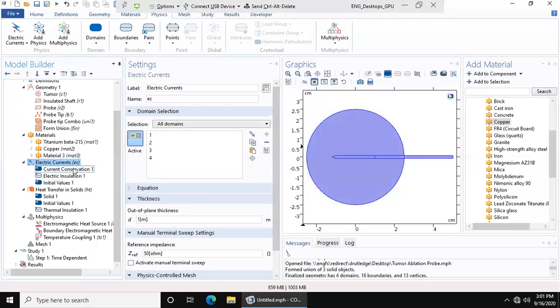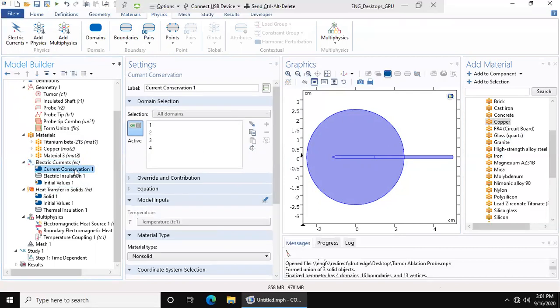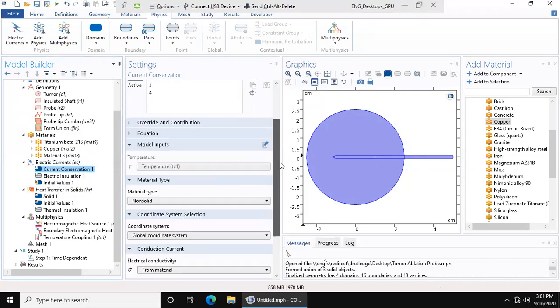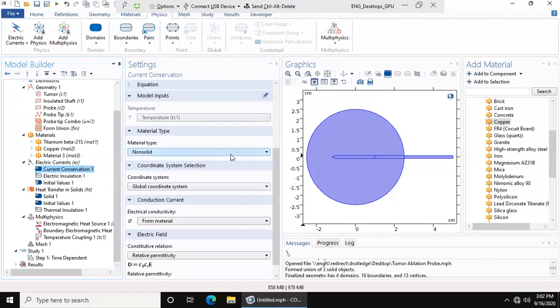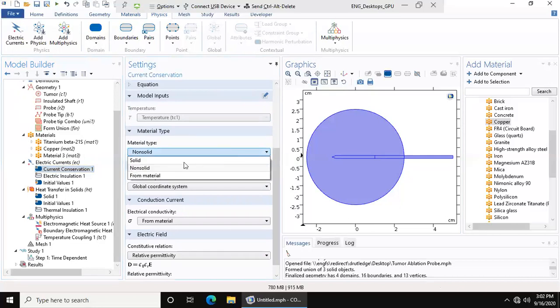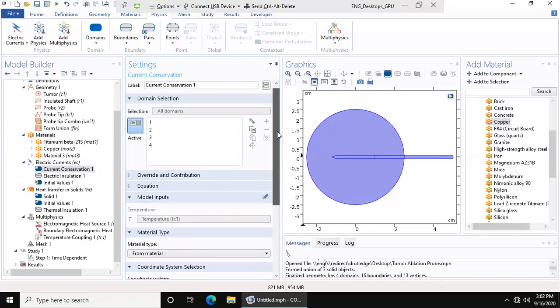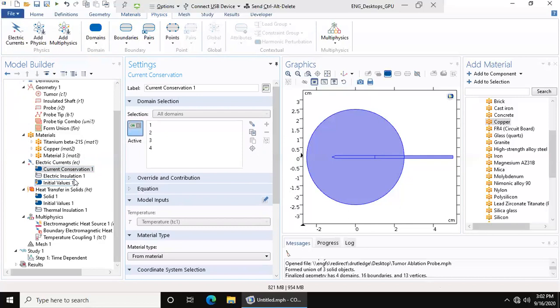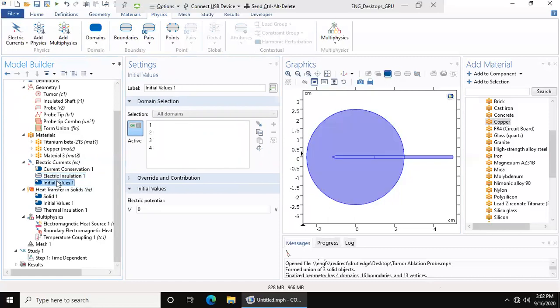What you want to do is make sure that your entire model is selected because all of them are going to be exposed to electrical current, even if one is an insulator. Current conservation, we want this from material. Electrical insulation: all of our boundaries that are not bound to another geometry is chosen, that's fine.